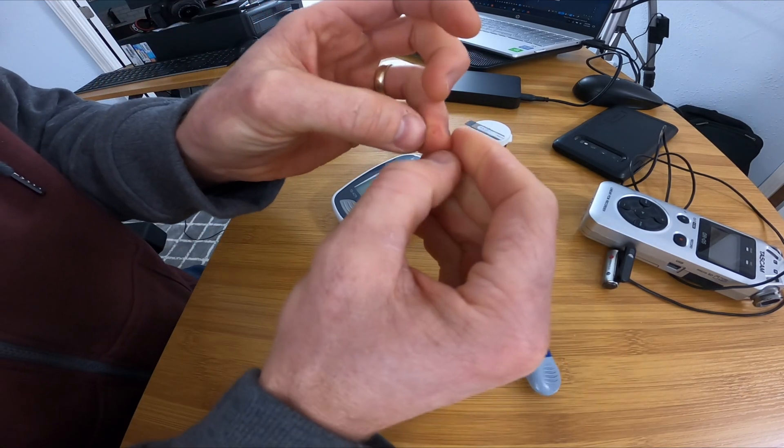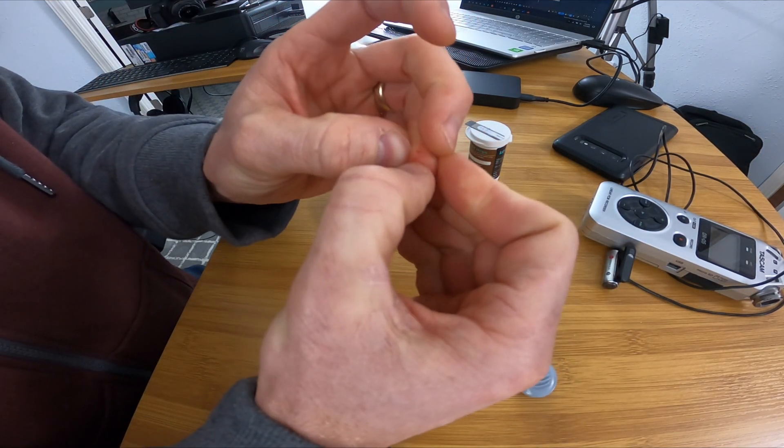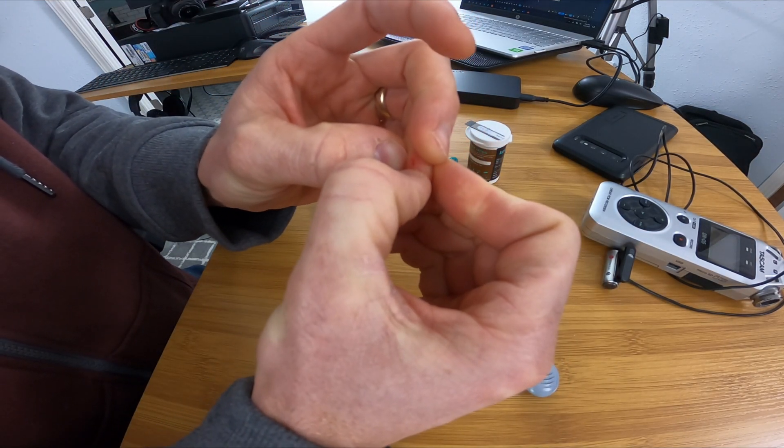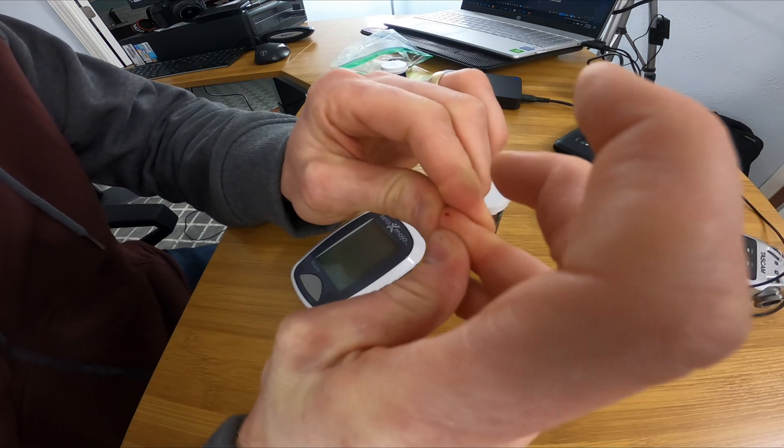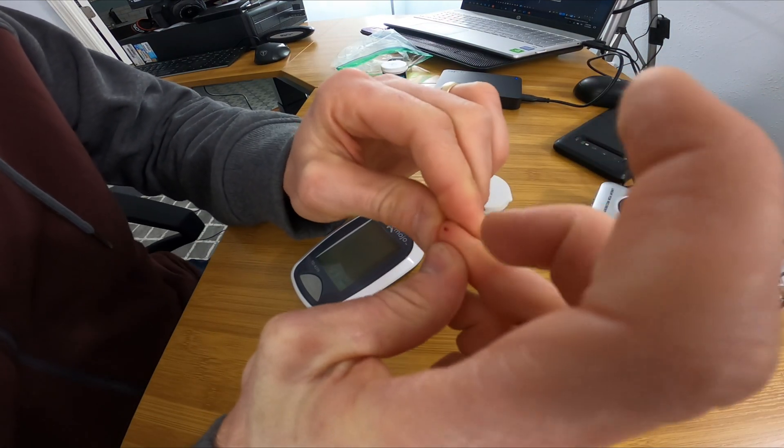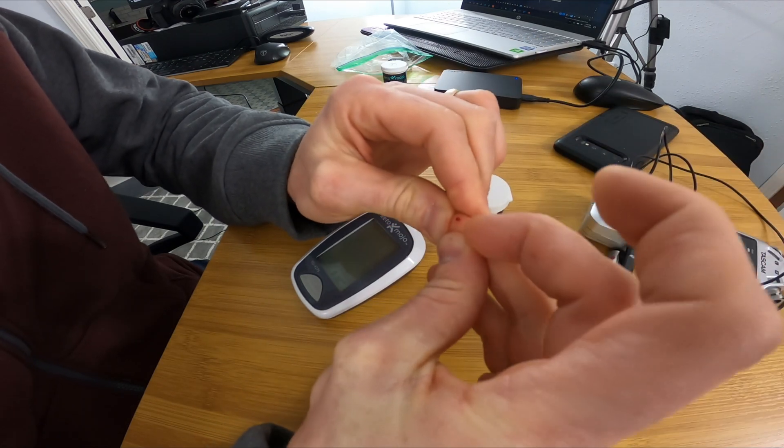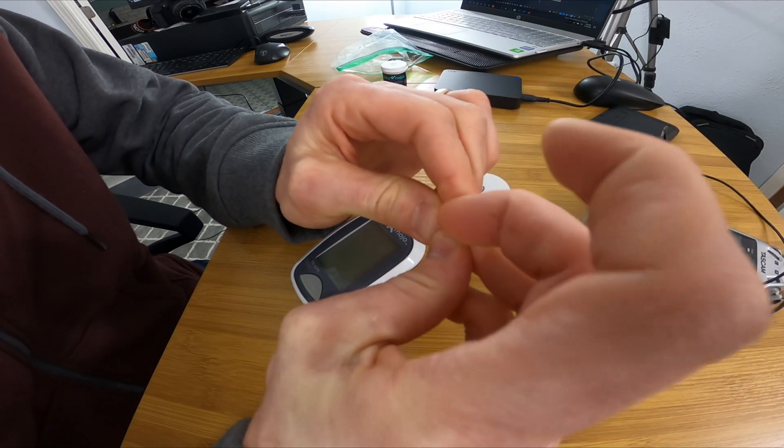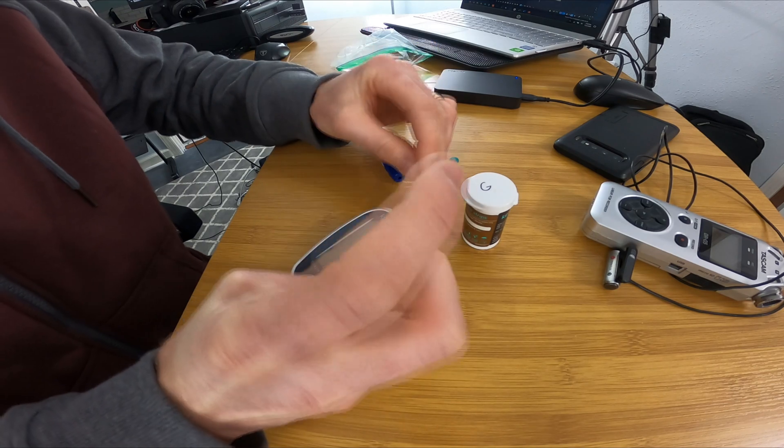I often do it on the side of my finger where it's a little bit less calloused. If you do a lot of deadlifting and things like that, it's going to be tricky to get blood. You often want to push that blood down. All you need is one drop. You can do it. There's kids that do this every day.